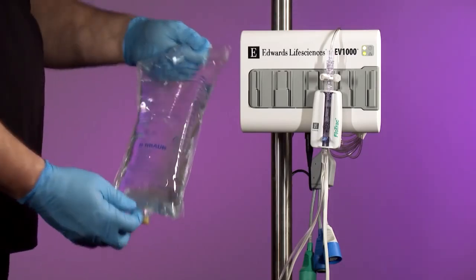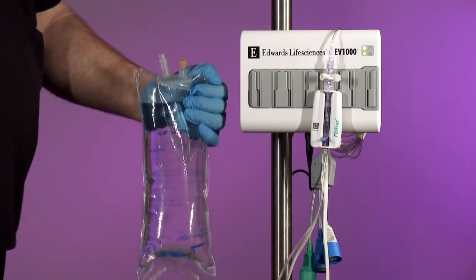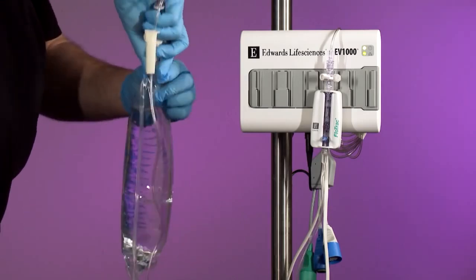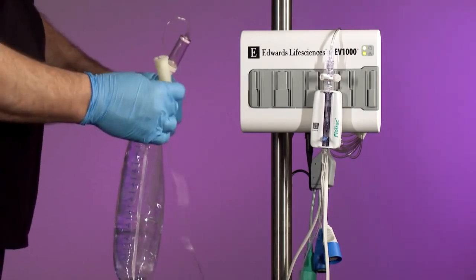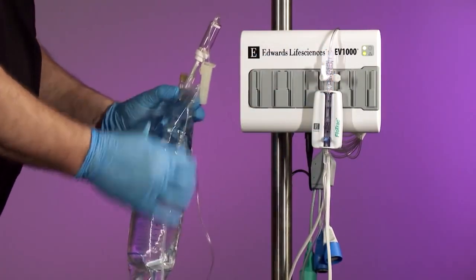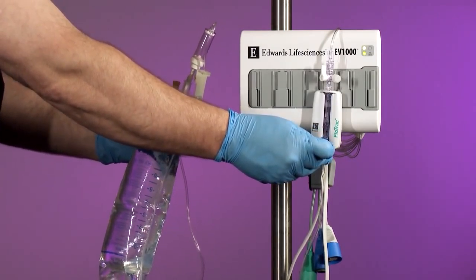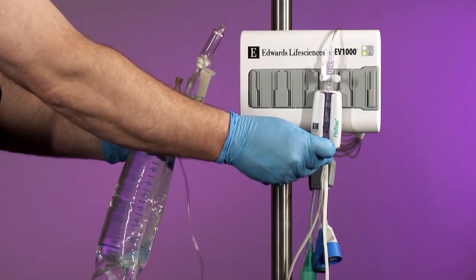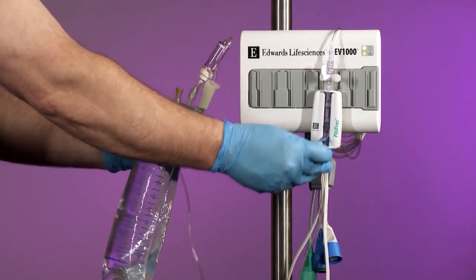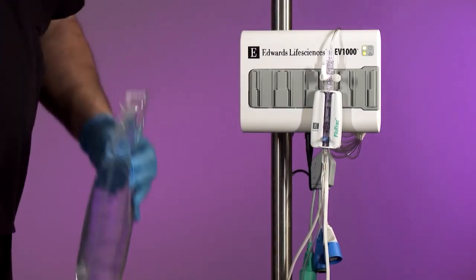Invert the flush bag, allowing air to rise to the base of the bag. Spike the flush bag with the fluid administration set. Turn the FlowTrack sensor stopcock toward the pressure tubing. While keeping the bag inverted, place pressure on the bag with one hand while pulling the snap tab flush device on the sensor to evacuate air from the bag and fill the drip chamber halfway or full, depending upon institutional preference. Insert the flush bag into the pressure infuser bag and hang on the IV pole.